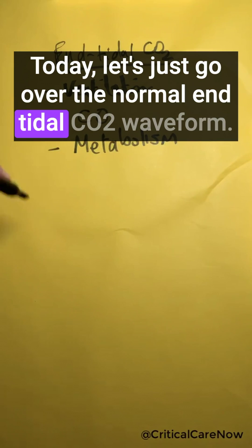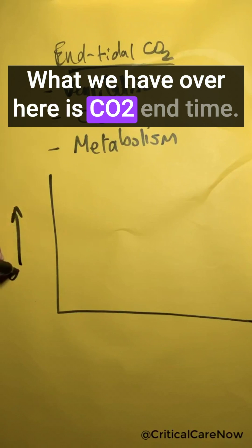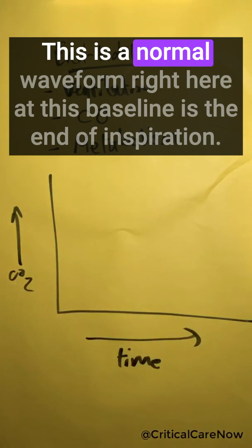Today, let's just go over the normal end-tidal CO2 waveform. What we have over here is CO2 and time. This is a normal waveform.